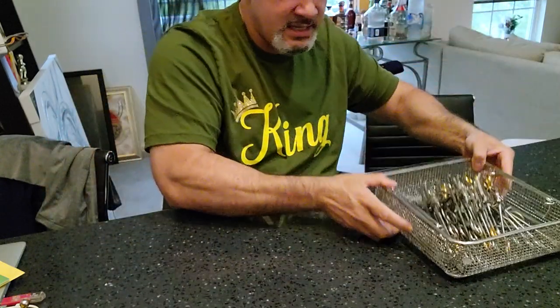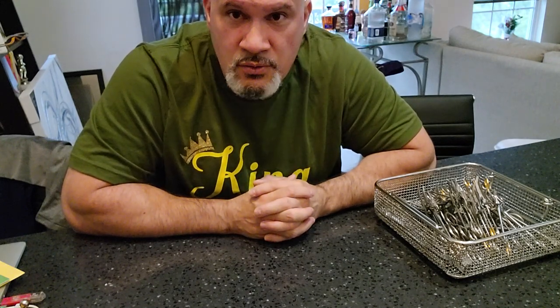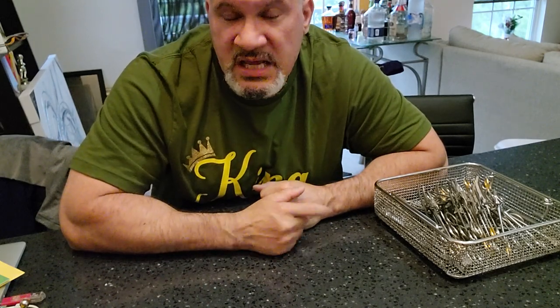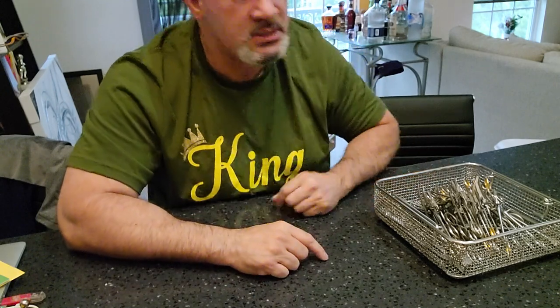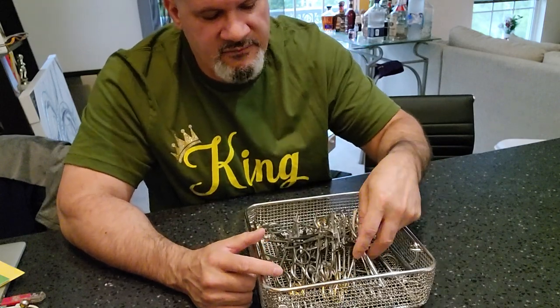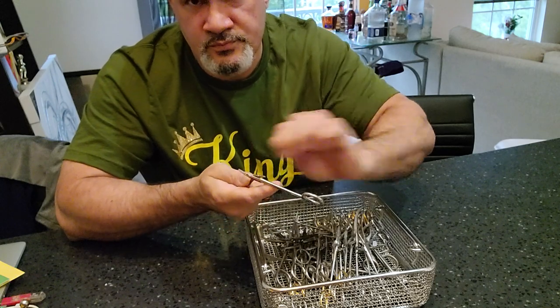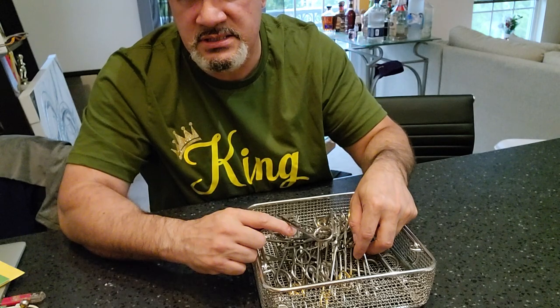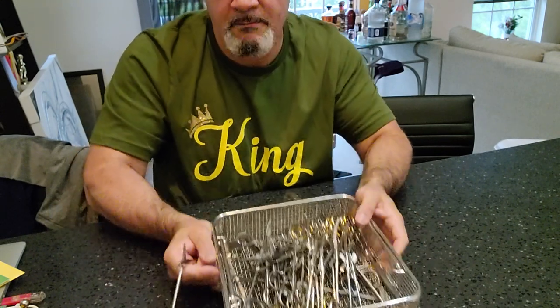Now, do I take this whole basket and dump it into the soak water to let it soak? If you're doing that, you're improperly cleaning instruments. Because once you soak to loosen up the soil, you need to grab each one of these instruments one by one to brush and scrub. And where are you going to put them back — outside the basket, inside the basket while it's underwater?